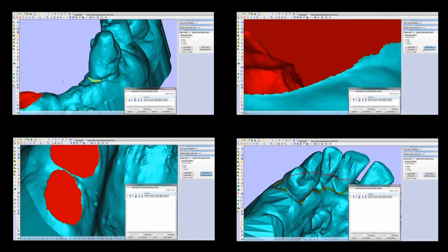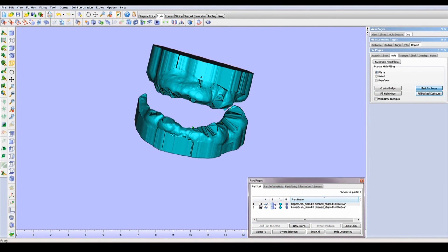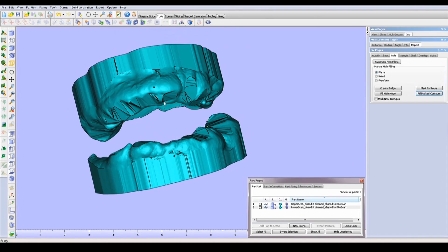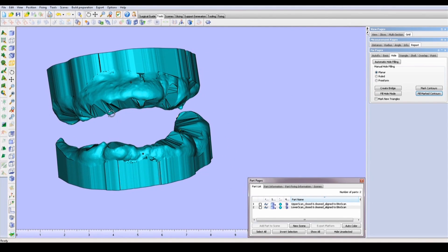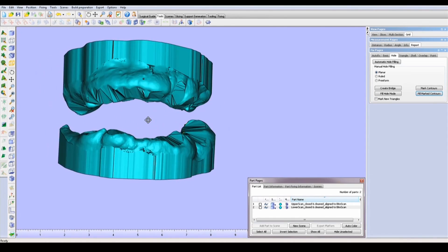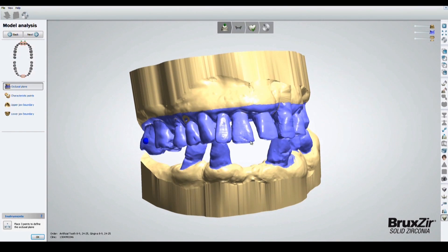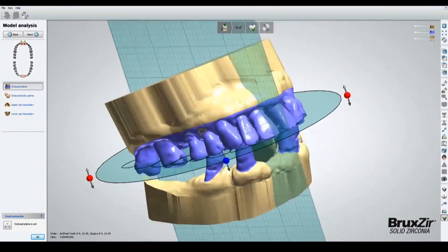In this case, we want to extract all the teeth in both arches. As you can see, we now have an articulated model with the teeth missing. The next step is to import a library of teeth to set up for the patient. Before we do that, I'd like to design exactly where the occlusal plane is. Because this is an immediate, we're actually going to use the previous teeth as a guideline.